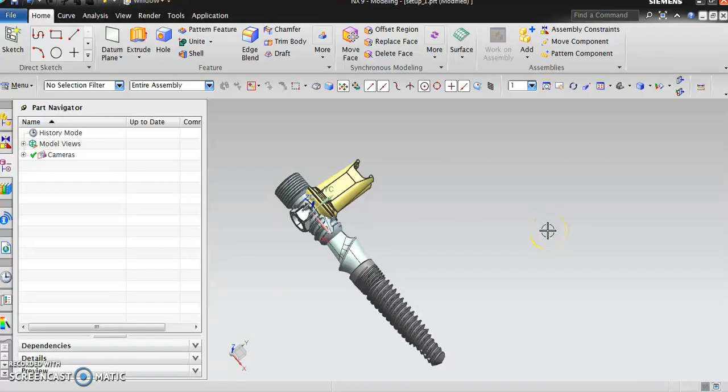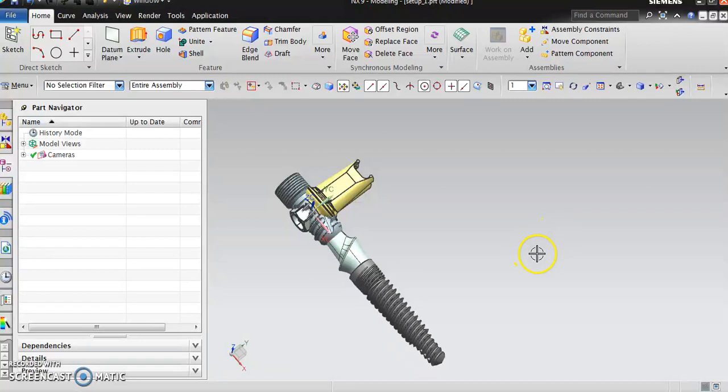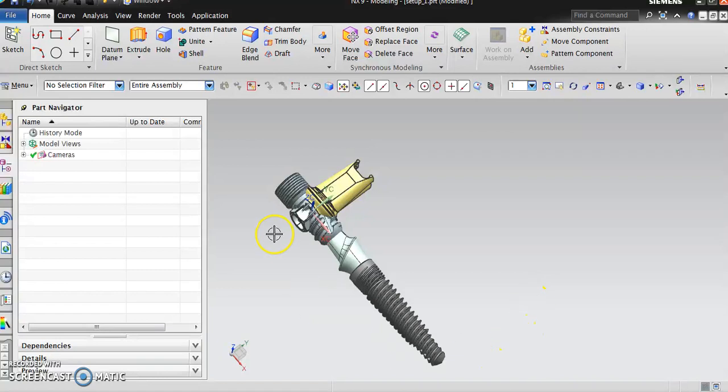Hello all, welcome. In this video we will discuss the important elements of dental implants. On the screen you are looking at, I pulled in four different components that will make up a complete dental implant system. We will discuss one by one the main characteristics and attributes of each element.